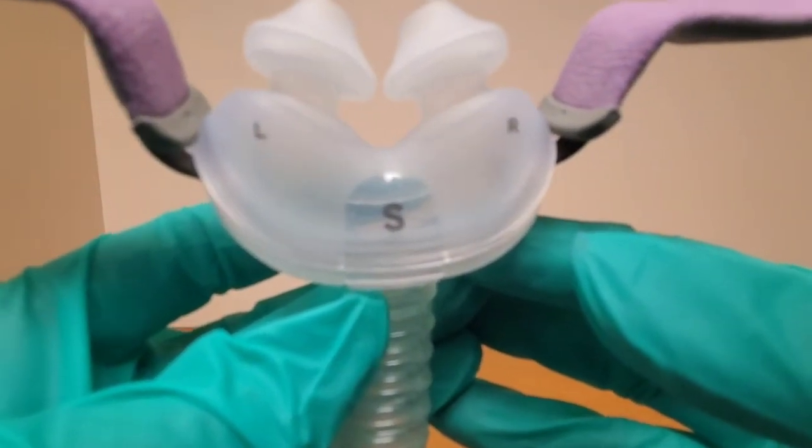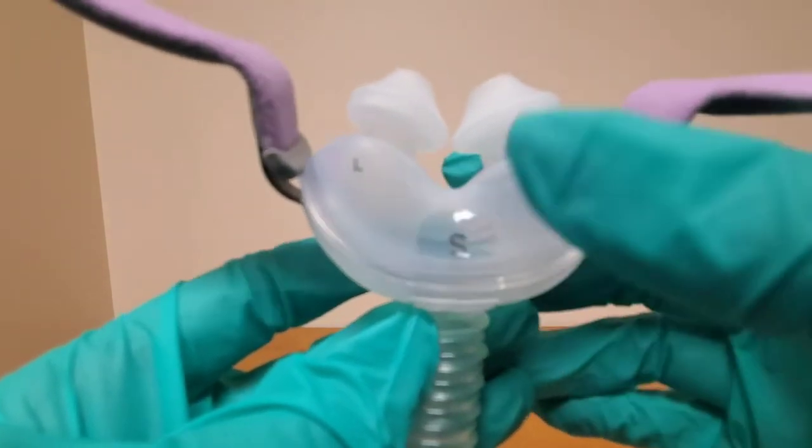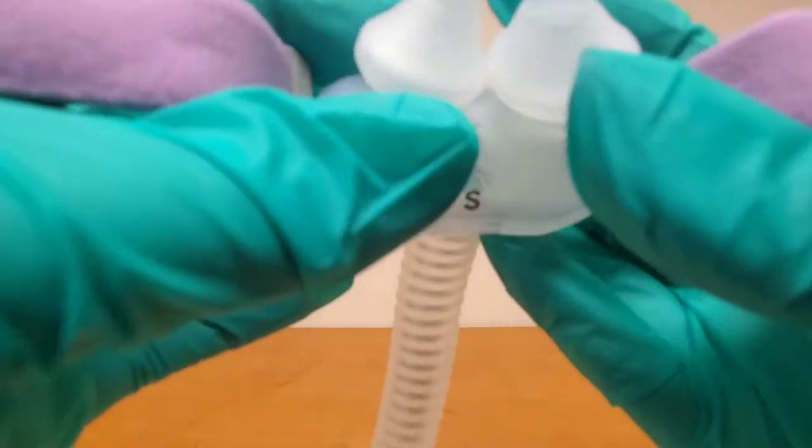You can see left and right nasal is marked. Here's where the size is and this material feels different so that in the dark of the night you can tell which side of the mask should be facing you.